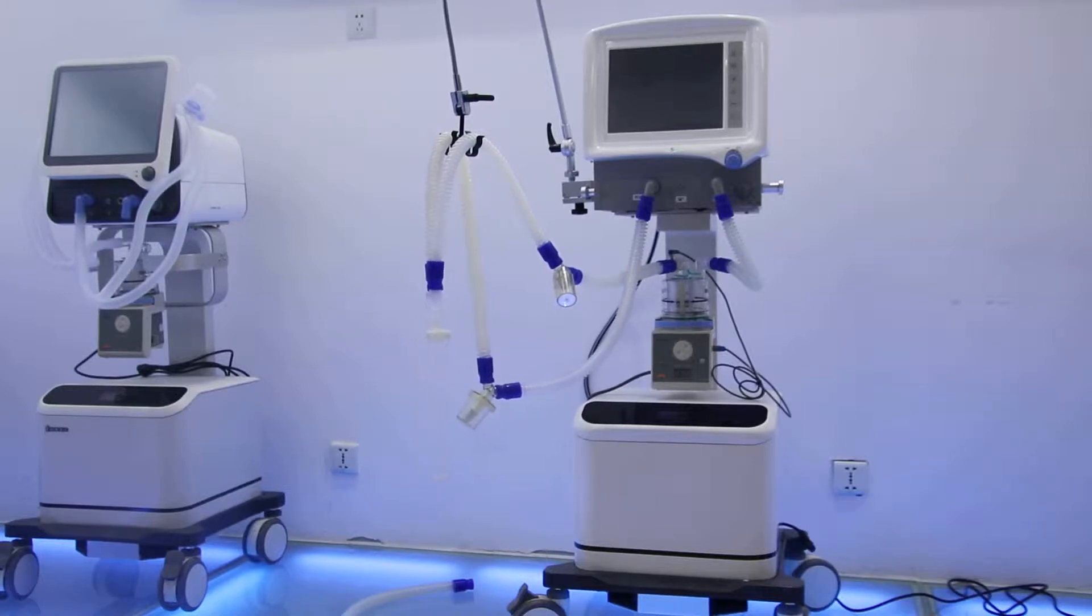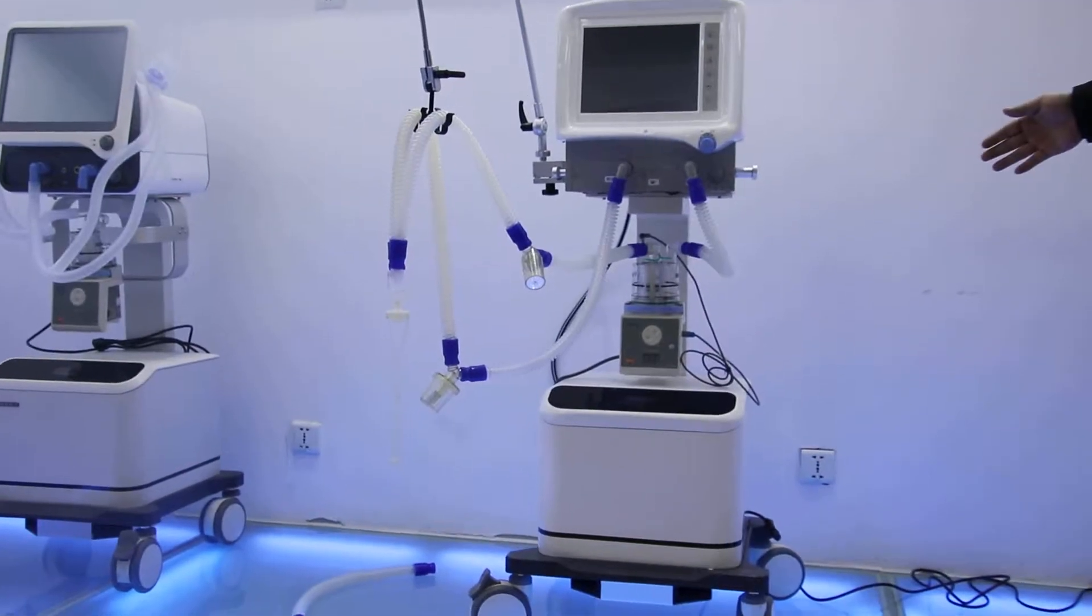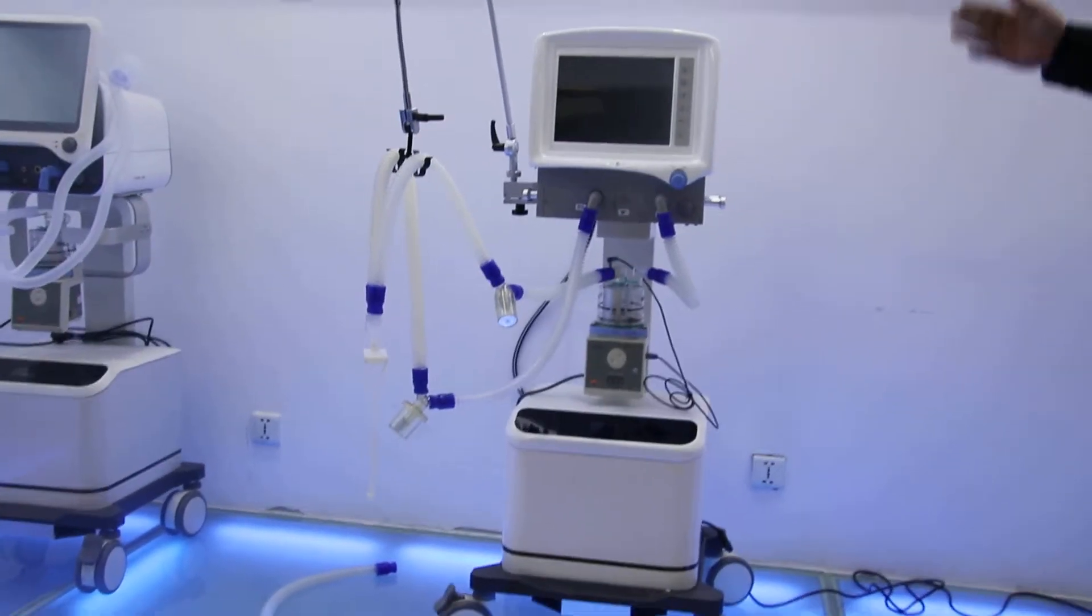This is our S1100 ICU ventilator, and for this we can first check the main components, including the main engine, the humidifier, air compressor, and the hanger.